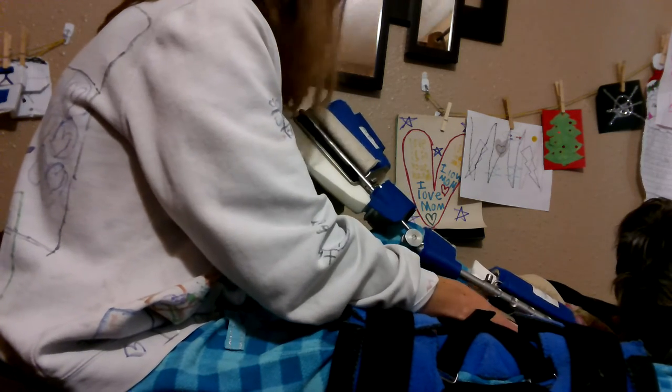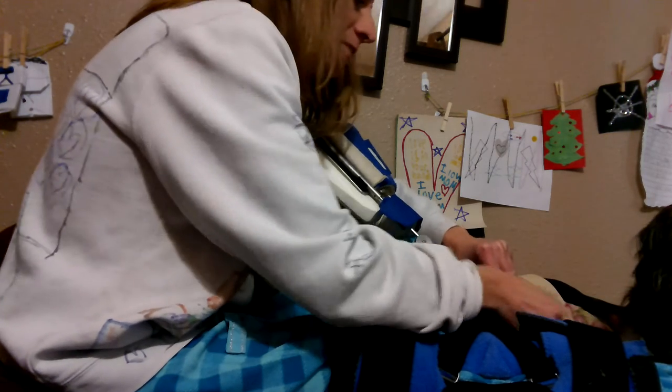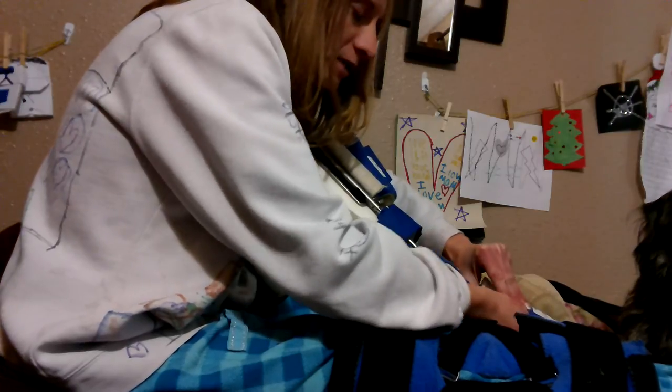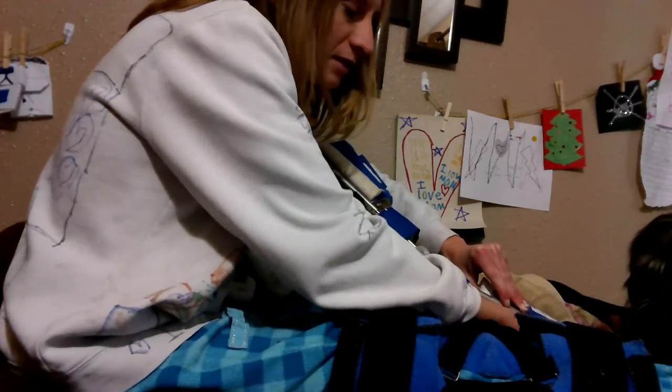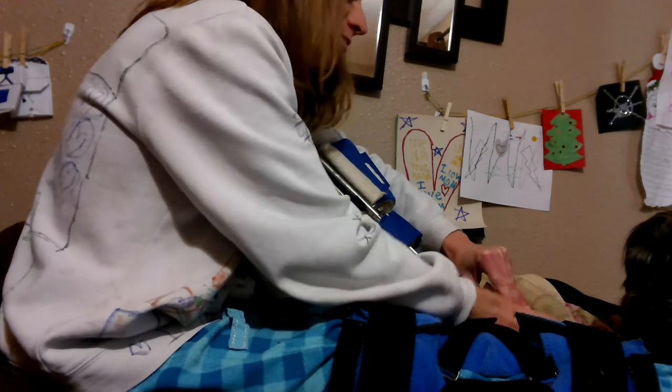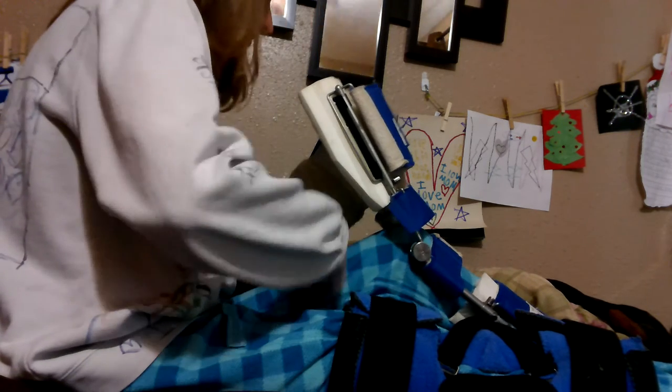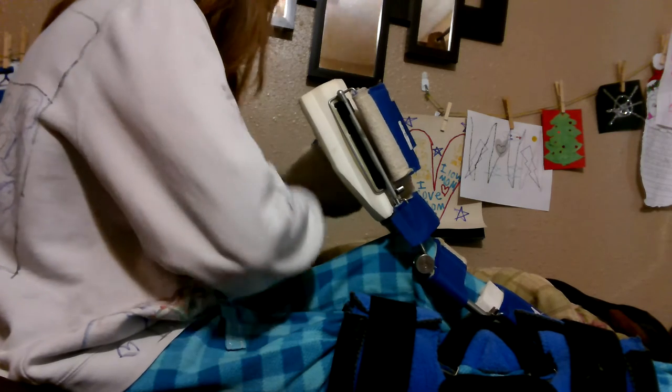So let's just try to get this on. Sorry, I'm tired today. When you're putting it on yourself, it's better to start with the bottom — the part that goes around your calf. Because it's just easier to get it on there good, and then you can use your strength and the weight of your arms to really pull the rest down.